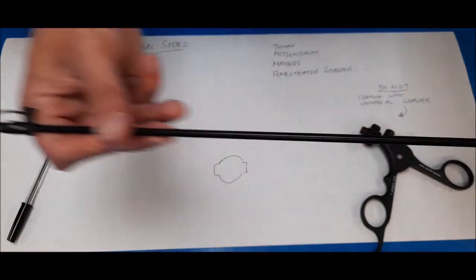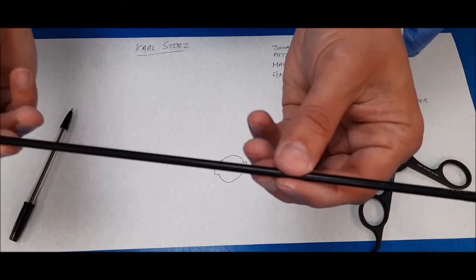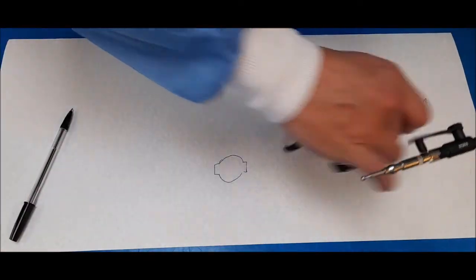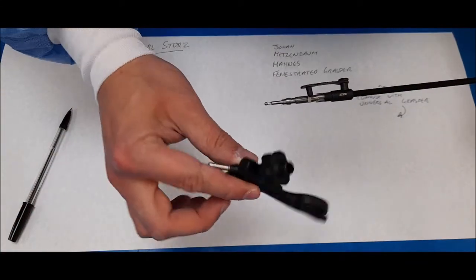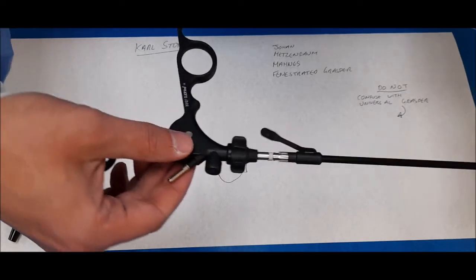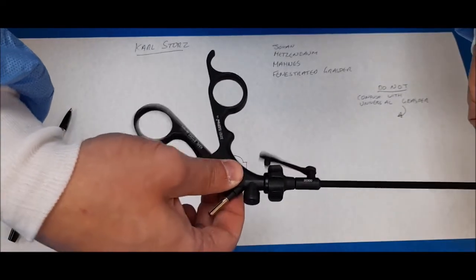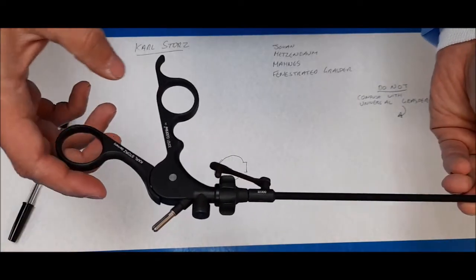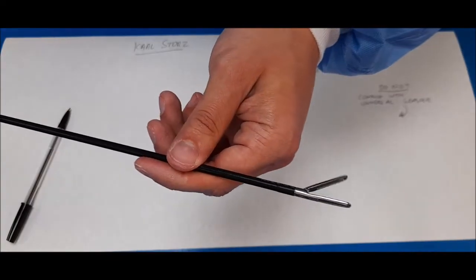Once it is secured on, you can hold onto the sheath, and it just simply slides into the handle. The handle will adjust itself to make the fit. You can now activate the grasper.